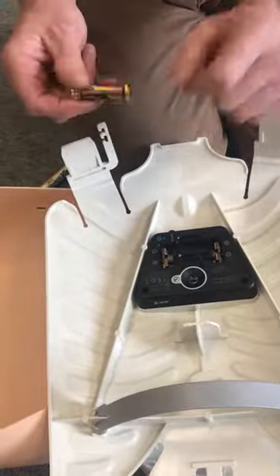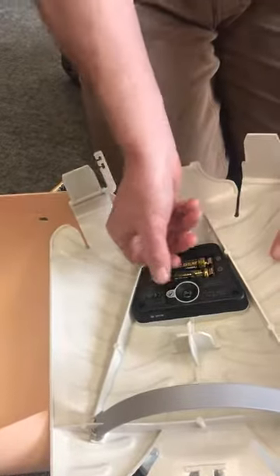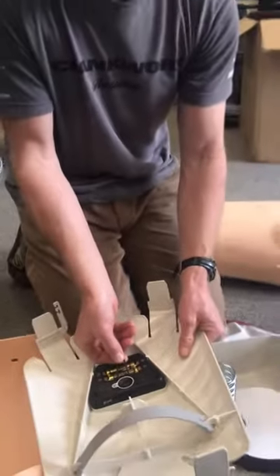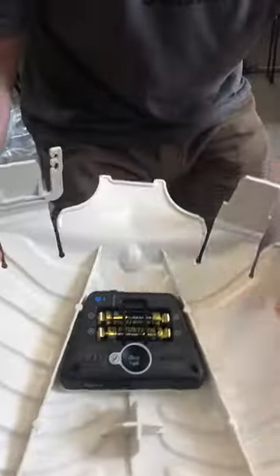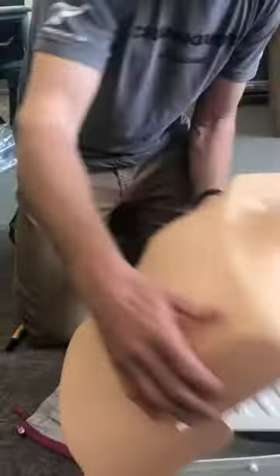Once the batteries are in place you'll hear a beep to know that we're live. There's a rubber ring here which squeezes over a notch here to stop the batteries coming out. There's no on or off switch — it's just automatically on. We replace the rib cage by sliding everything back into its right position like so, the lungs come back, head tilt, lungs fit on like so, and we're going to button the skin back on.